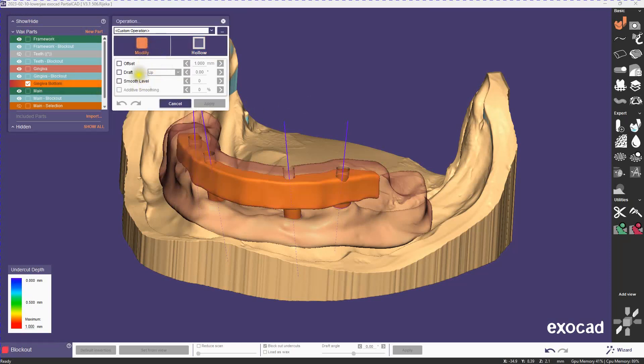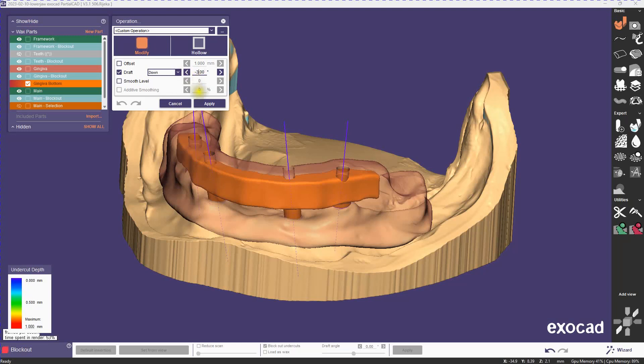Now, I'm going to apply a slightly negative draft here. This helps with the edges. We're going to actually change it to a positive draft later, but right now I just want to get the initial shape there. If your path of insertion was slightly more at an angle, you could get some wax running up the sides, and this prevents that.